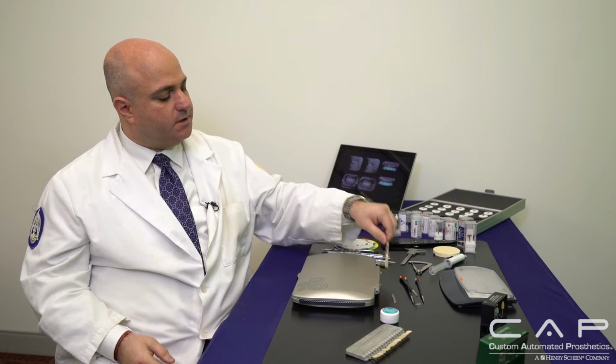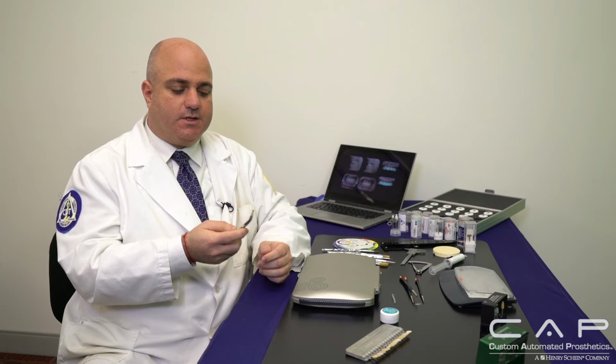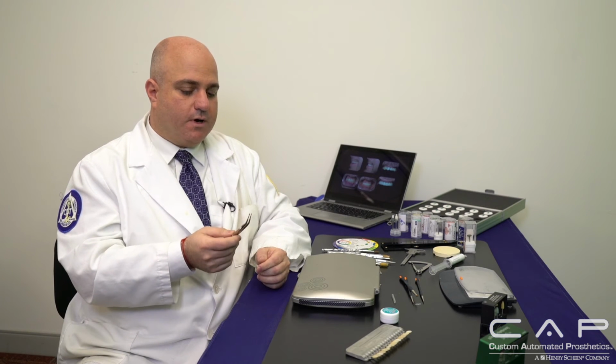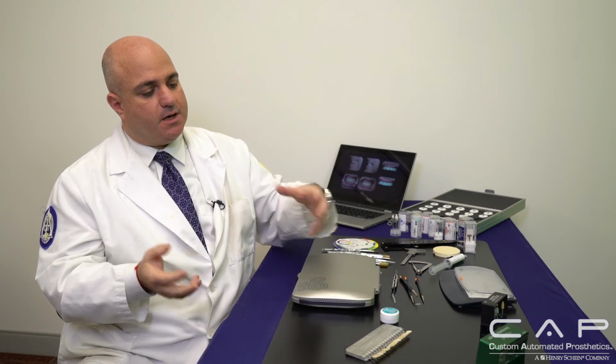I also have these, which are reverse grippers. In zirconia, we no longer have collars or anything like that, so being able to grab the restoration from within in order to stain it lets you go all around without any irregularities in the stain by the cervical. So I use the reverse crown grippers. Once we do that, we go ahead and stain and glaze. It comes out of the oven.